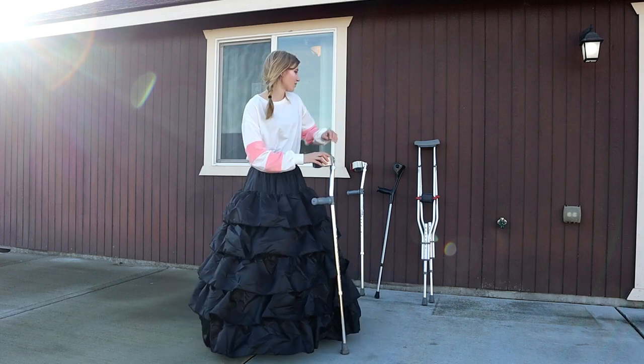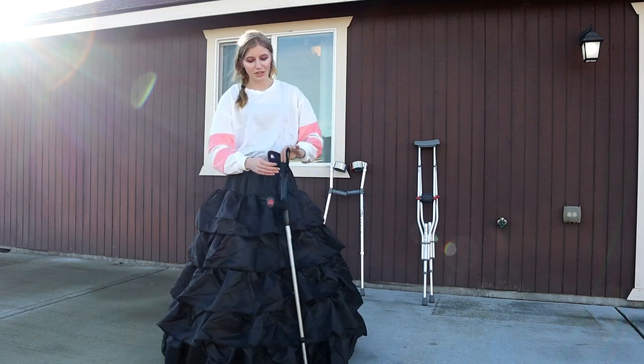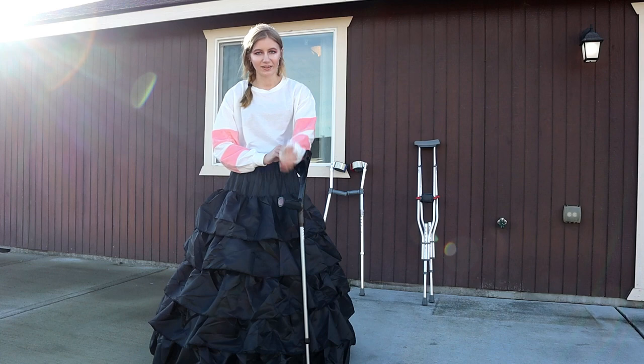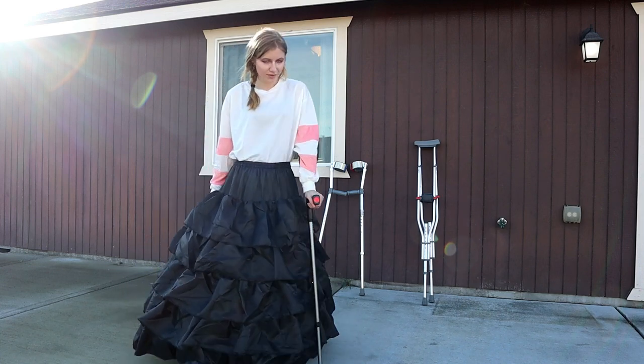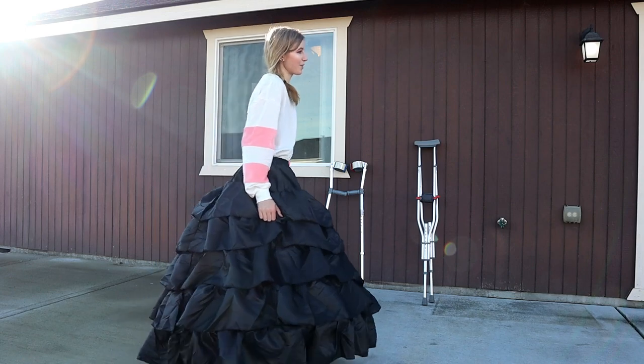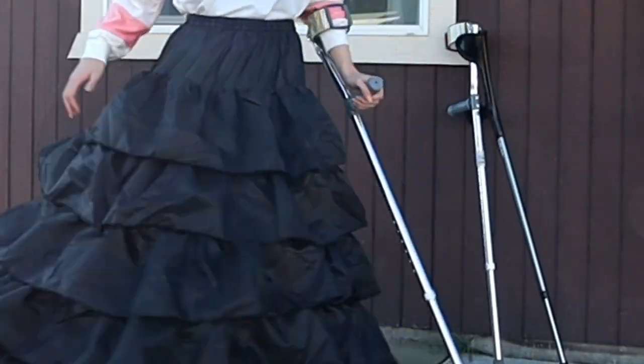So let me try one other thing — I have these other kind of crutches too. I don't really like them because you can't lift up with them. No, I think that's worse. Yeah, that's worse. I think so far the forearm crutch is the win.